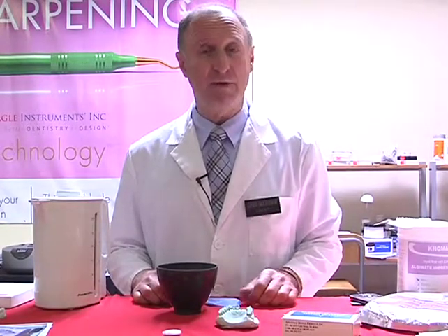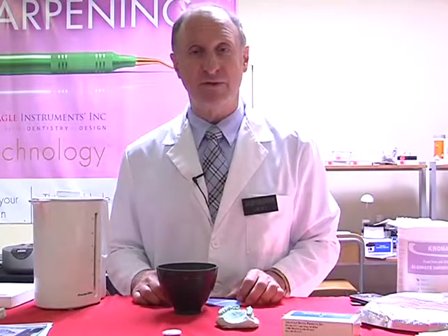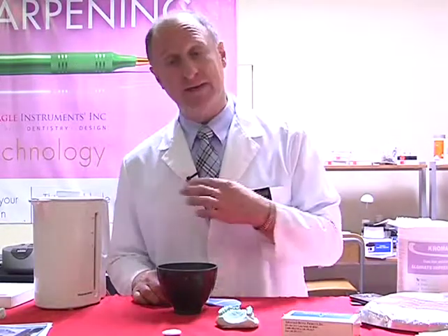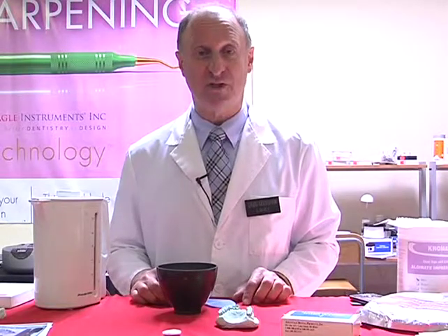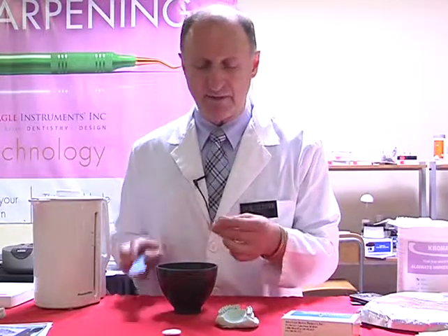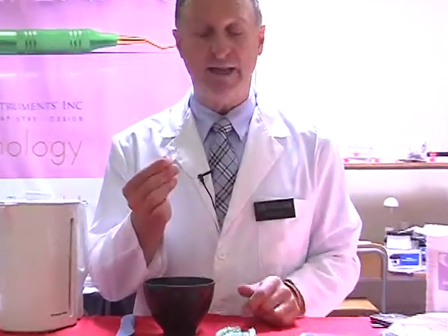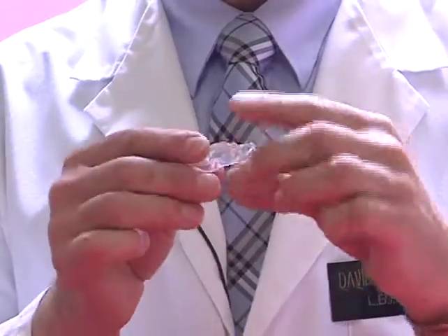In the microwave, take a regular ceramic cup, fill it three-quarters full of water, and put it into the microwave for 2 minutes. That'll be fine. The water itself should be sufficiently warm. Once the material is ready to go, it will form itself and turn clear. So it's changed from being white to clear.